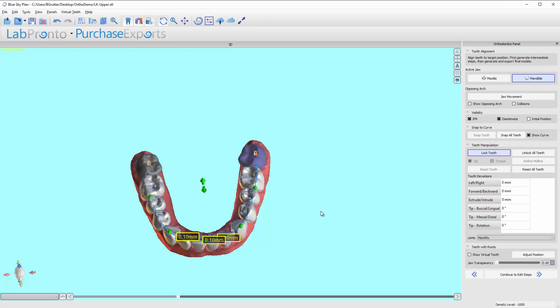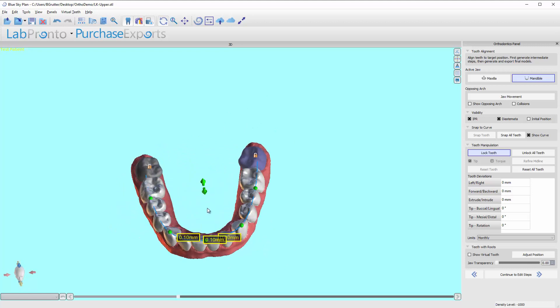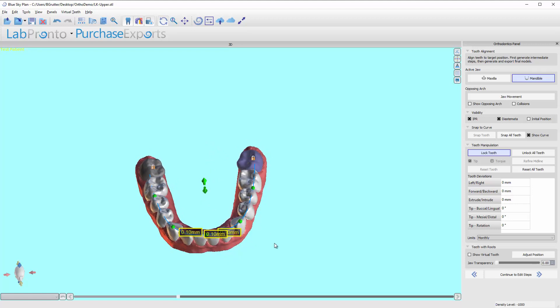We've now concluded our alignment. It really should only take about five to ten minutes to align the teeth; I was walking through all the nuances. Practically, I start on the upper, bring the curve to where I want it from an overall arch form perspective, lock the second molars, snap to curve, then move the curve up or down to tighten or loosen contacts and re-snap to idealize. Then I do the same with the lower, matching that curve to the upper.